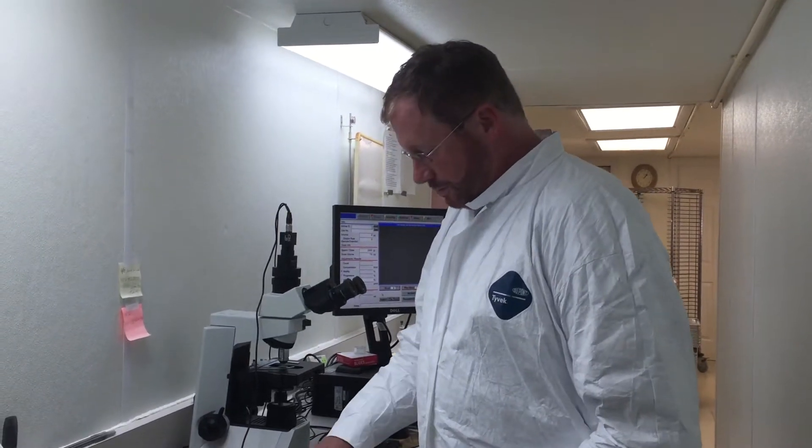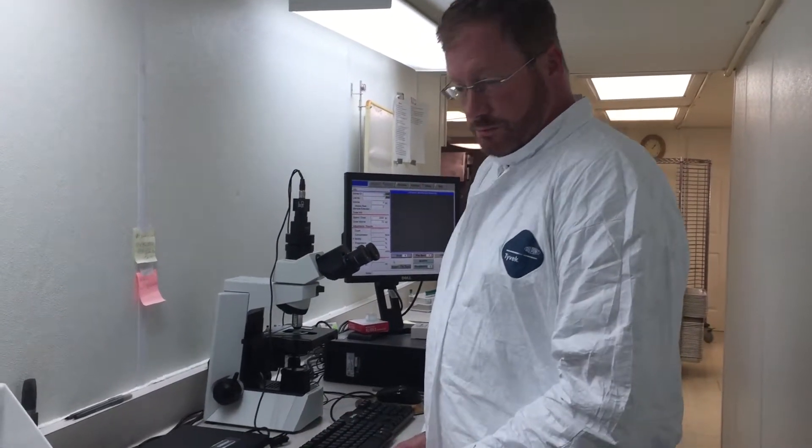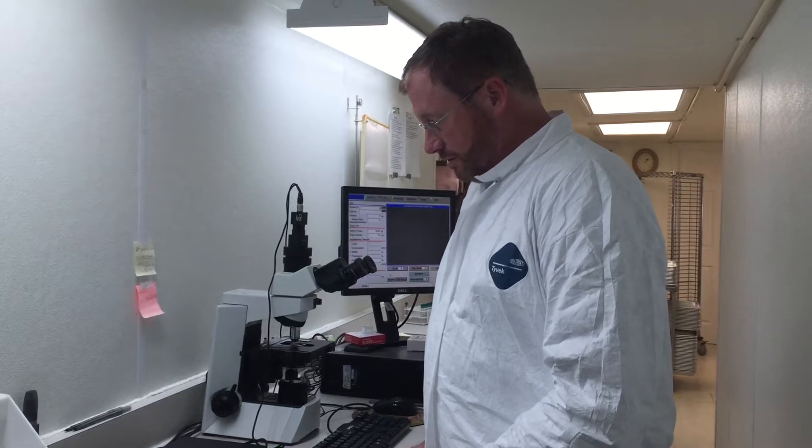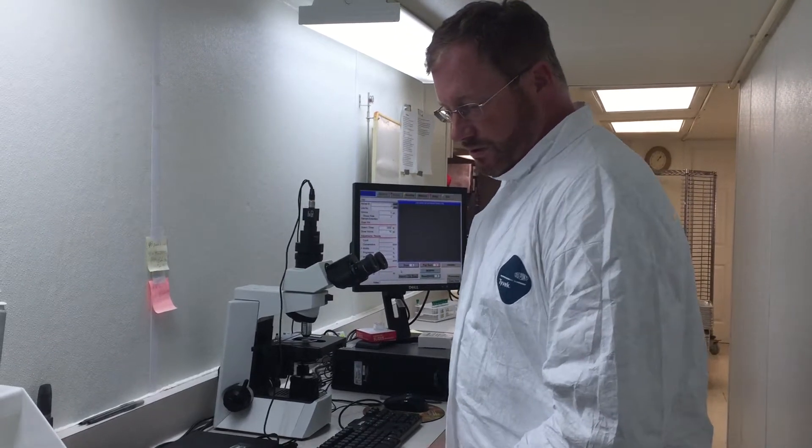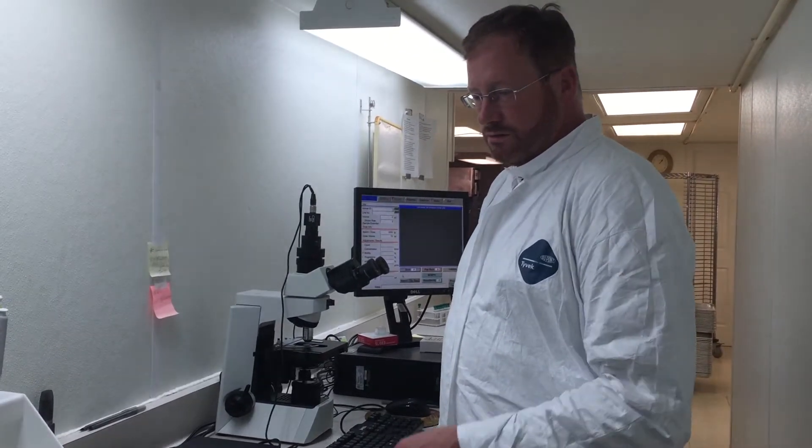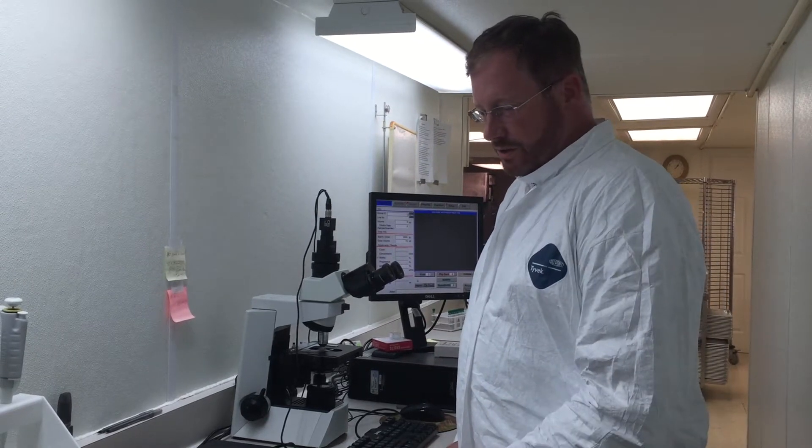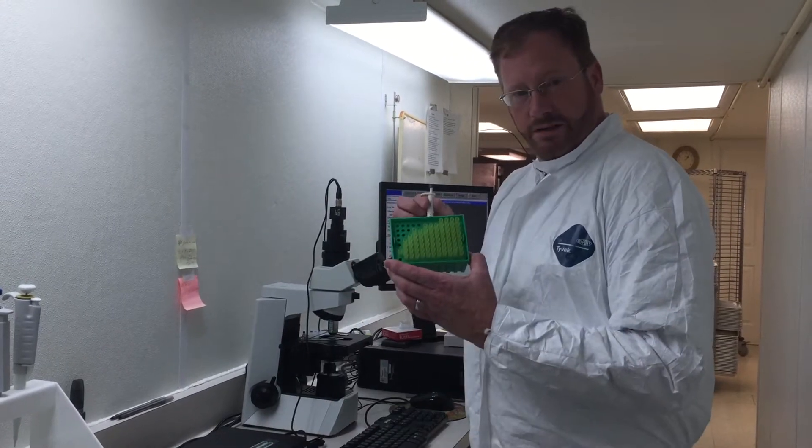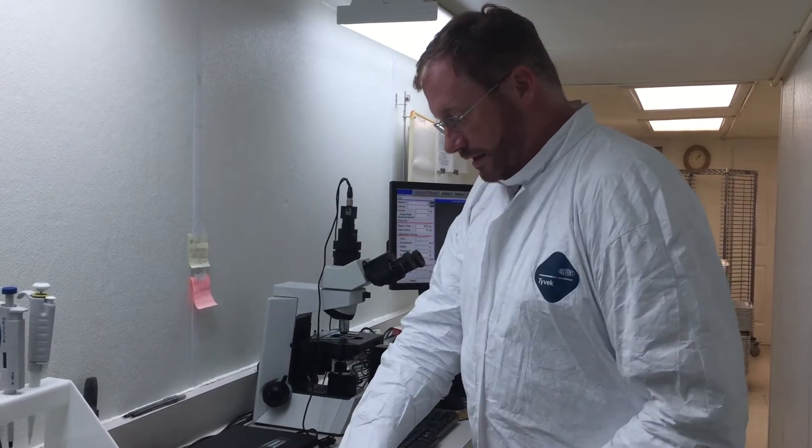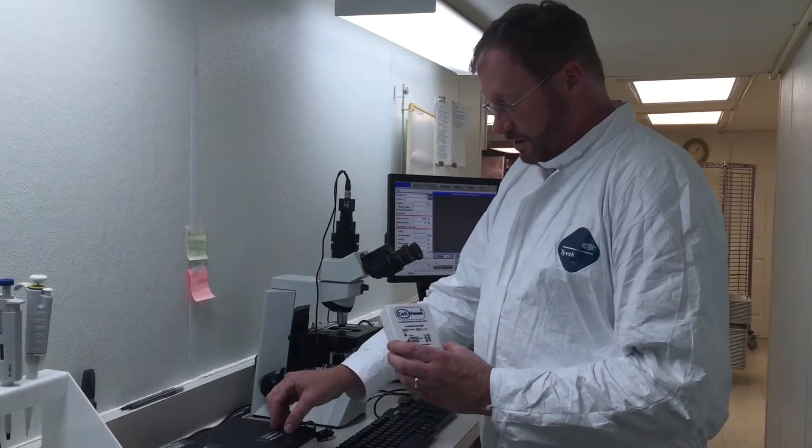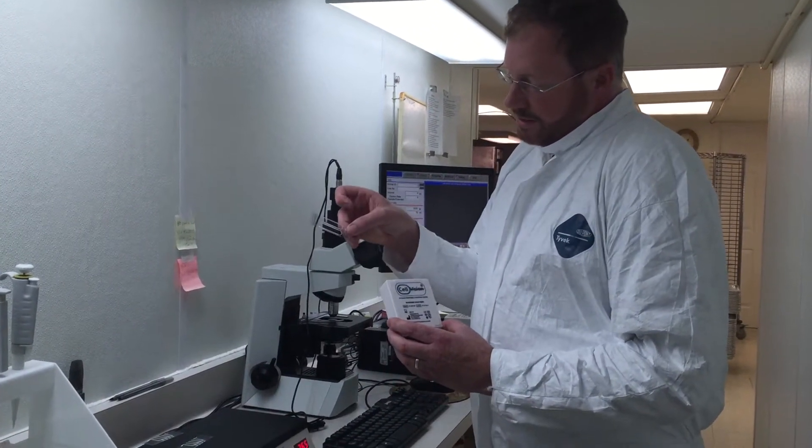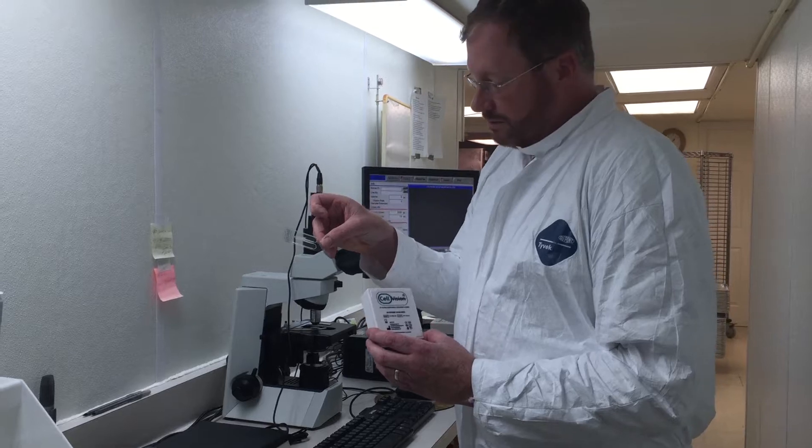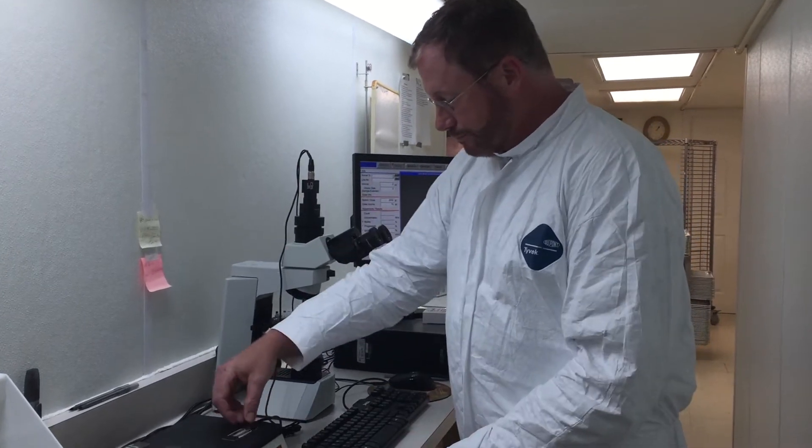Okay, we're here today to demonstrate the use of the Simple Count sperm kit to check the motility and concentration of prepared diluted semen doses. The kit includes a mini pipette, pipette tips, and special Cell Vision glass slide counting chambers that have grid lines to do the count.